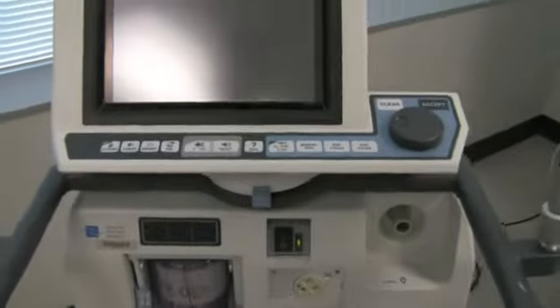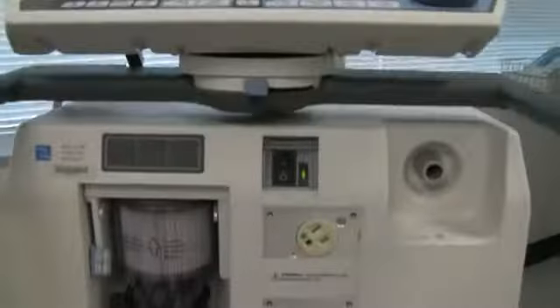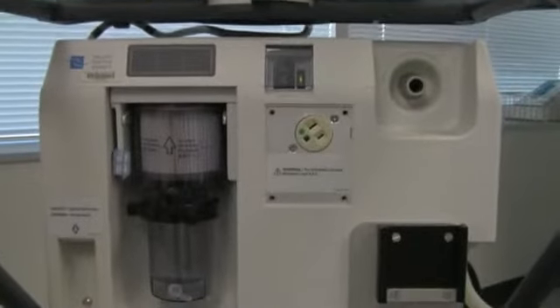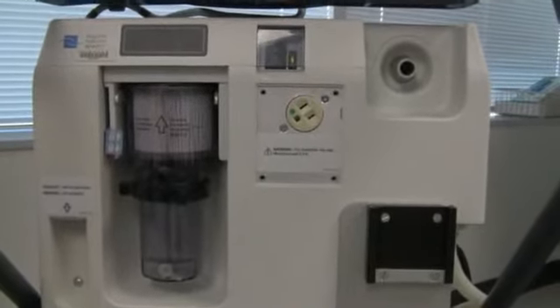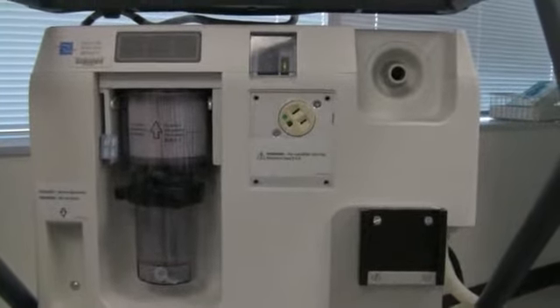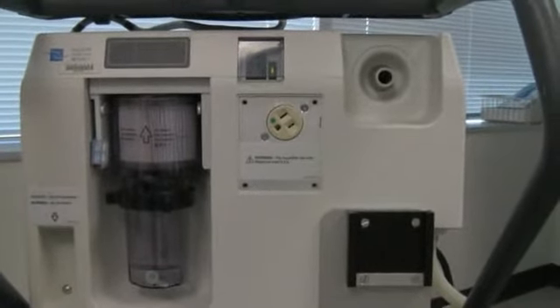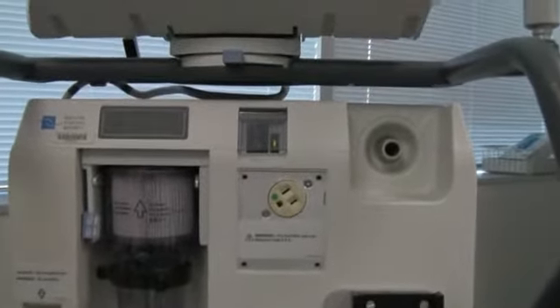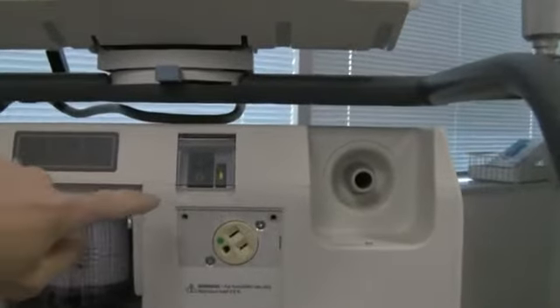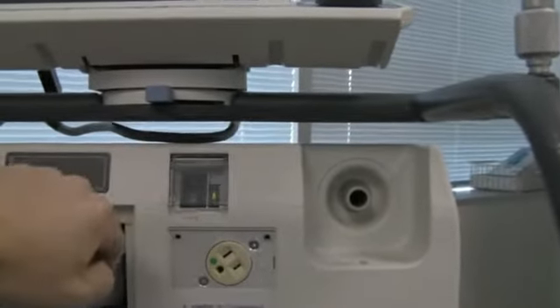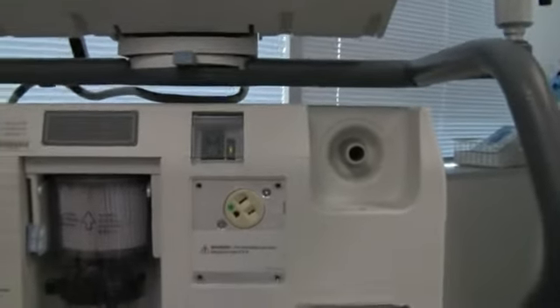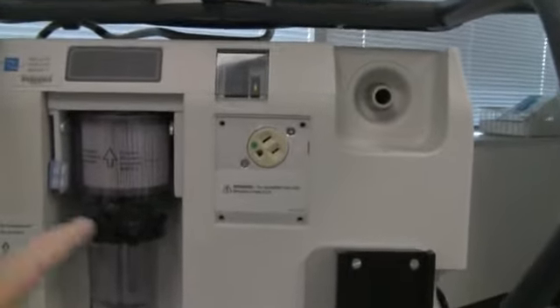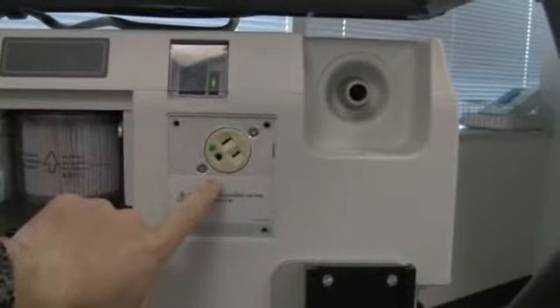You can see we have our inspiratory and expiratory ports there, where we will plug in our patient circuit when we get to that. We have the power switch right on the front again, covered by another panel there so that we can lift it up and make sure that it doesn't accidentally get bumped on or off.